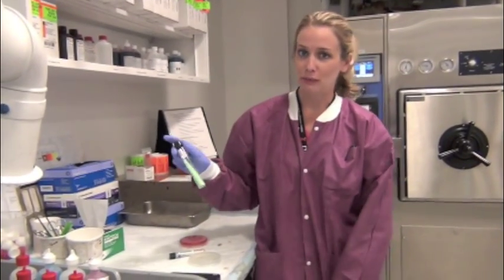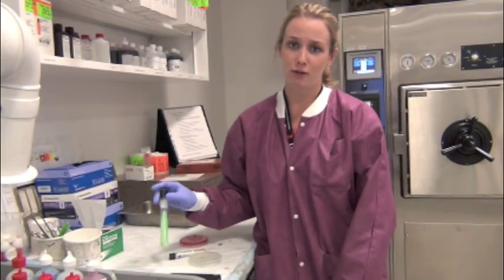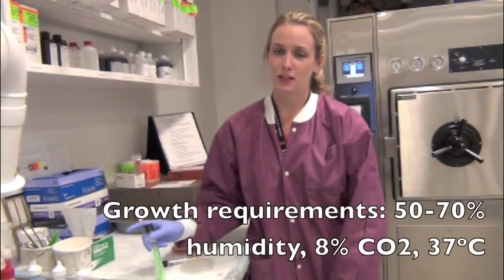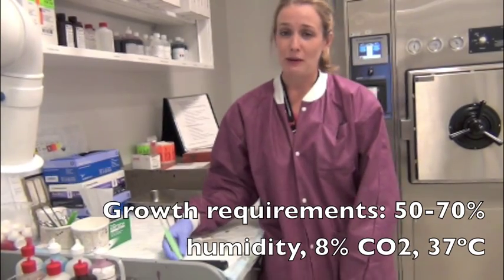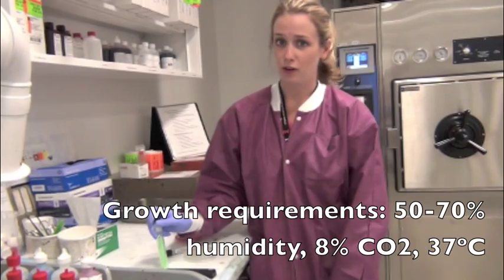Next, we're going to cover the culture media that we use to grow mycobacteria. Mycobacteria are strictly aerobic. They grow well at high humidity. So here in the Cleveland Clinic, we use 50 to 70% humidity in our incubators. We also use about 8% CO2, and we use body temperature at 37 degrees Celsius for growth.